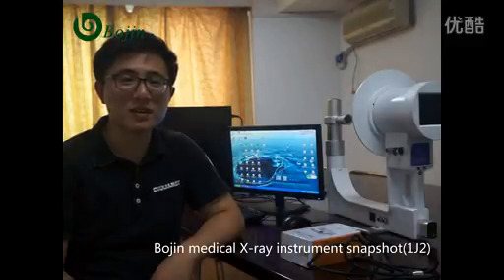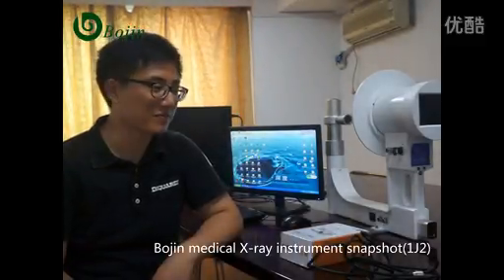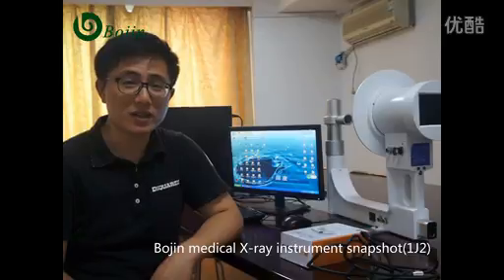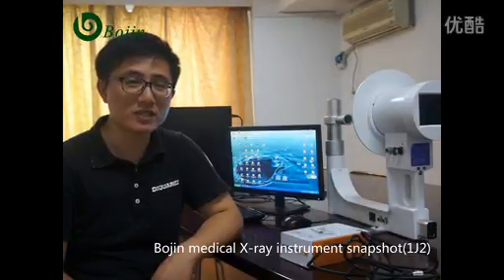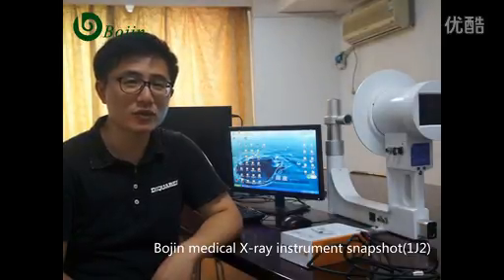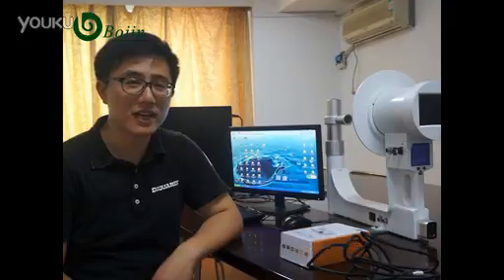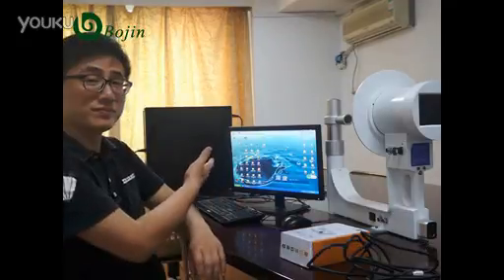Hello, I am Antonio. Let me introduce how to use the USB TV box and how to connect the X-ray instrument to the computer. Okay, let's start.